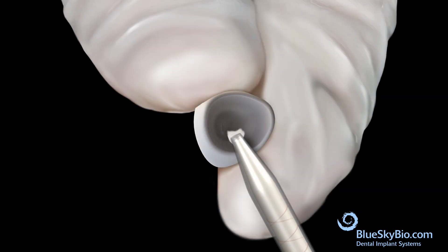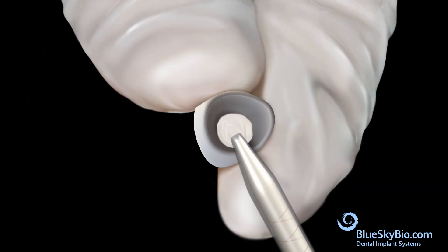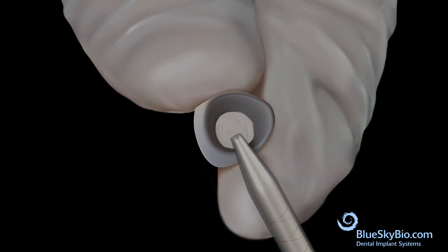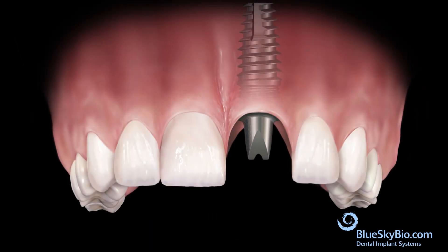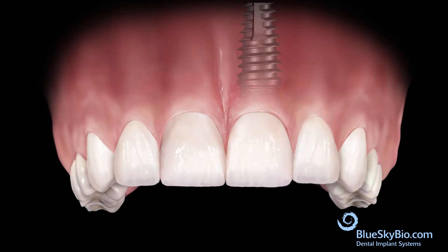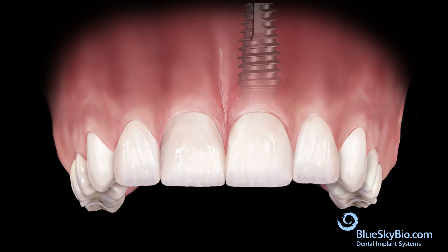Apply bonding material to the crown. Bond the crown to the abutment and remove excess bonding material.